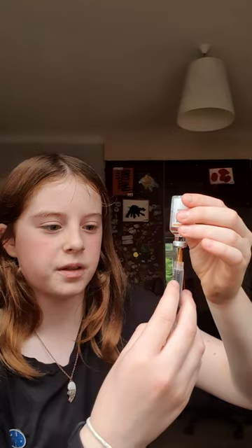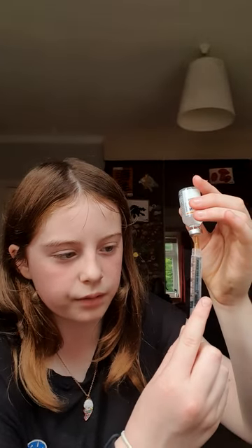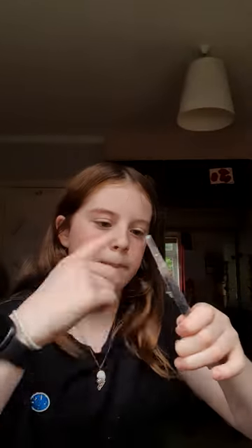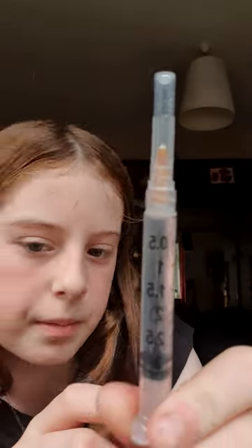There may be a few bubbles but that's okay — if they're tiny little champagne bubbles that's fine. Keep pulling it back very slowly until it reaches three. Then just pull that out. Now if there are any bubbles you will put the lid back on and go until they float to the top. Look how it gets all bubbly. There are no more bubbles apart from tiny little champagne bubbles at the bottom.